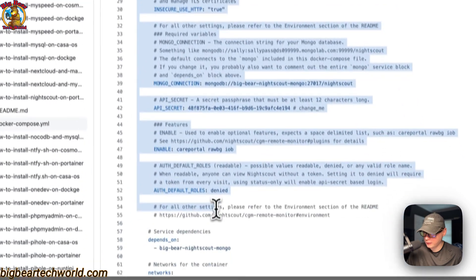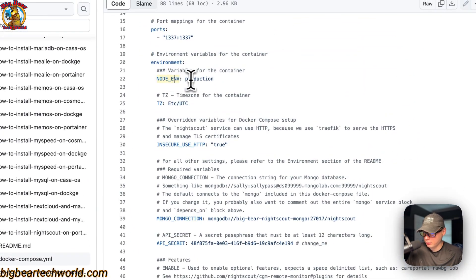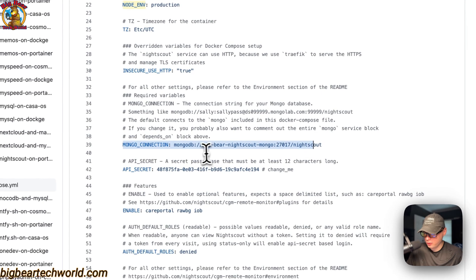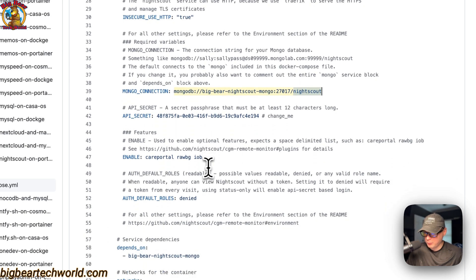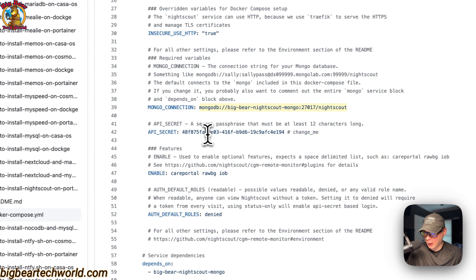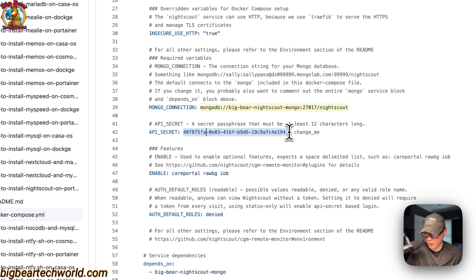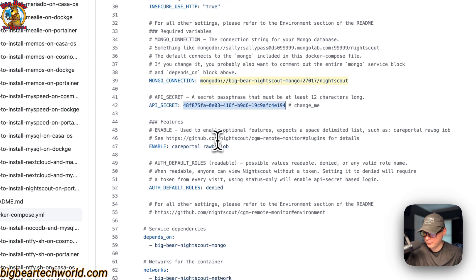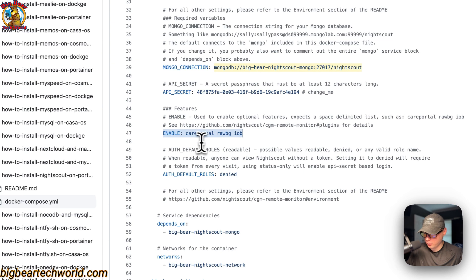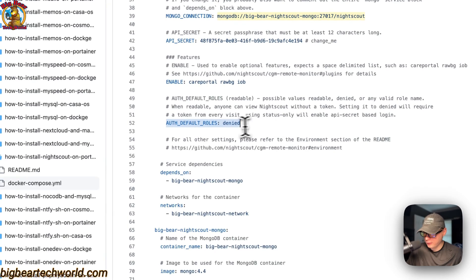Now for environment variables: NODE_ENV is set to 'production', the timezone should be set to your own timezone, and INSECURE_USE_HTTP is set to 'true'. The Mongo connection string connects to the database using the service name. The API secret should be changed to your own value — you can use a UUIDv4. You'll need this to log into the UI. Enabled features include care portal, raw BG, and IOB. The auth default roles is set to 'denied'.